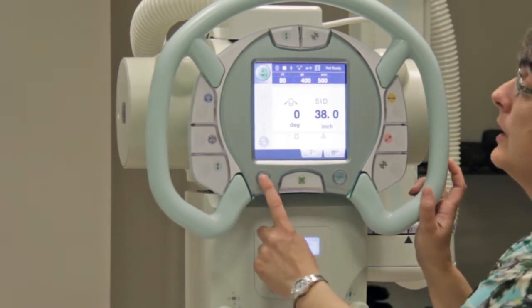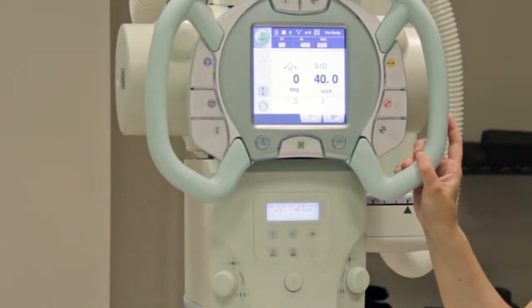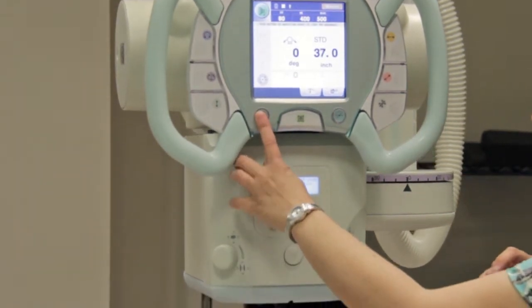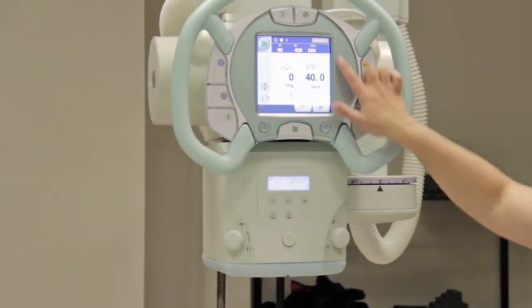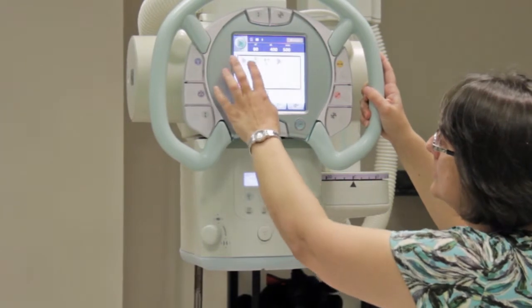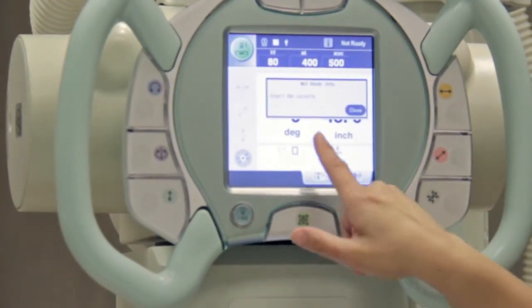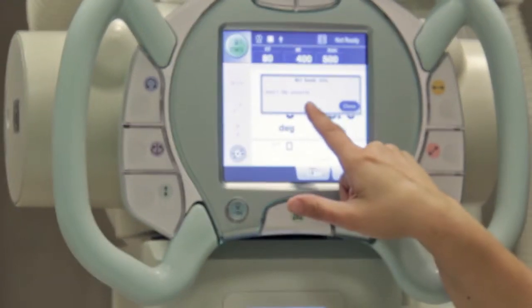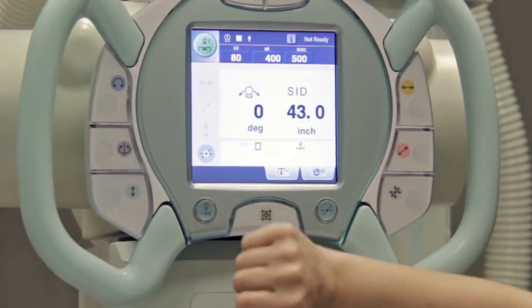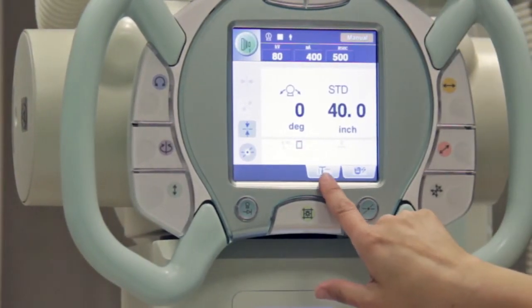This is your tracking button — it's set to track at 40 inches. Right now I'm set to the table Bucky, so it's tracking 40 inches to the table Bucky. If I'm on a tabletop technique, it's going to track 40 inches to the tabletop. Up in the right-hand corner I have a message that says 'manual,' which just means I'm on a tabletop. If you see a 'not ready' message, you can click the 'i' and the computer will tell you why it's not ready — in this case the detector is not in the table Bucky. When I switch to tabletop, it's not as concerned because it knows you're shooting to free table.